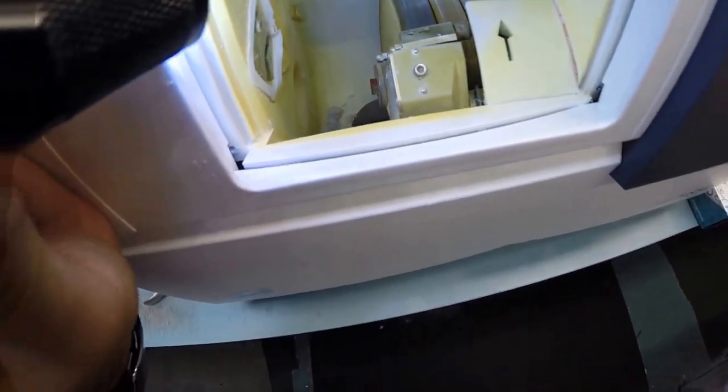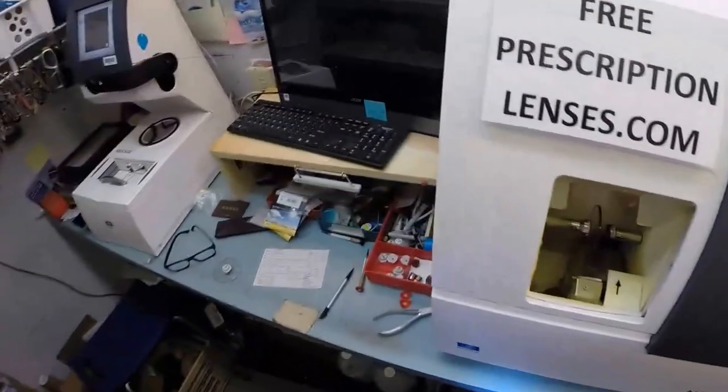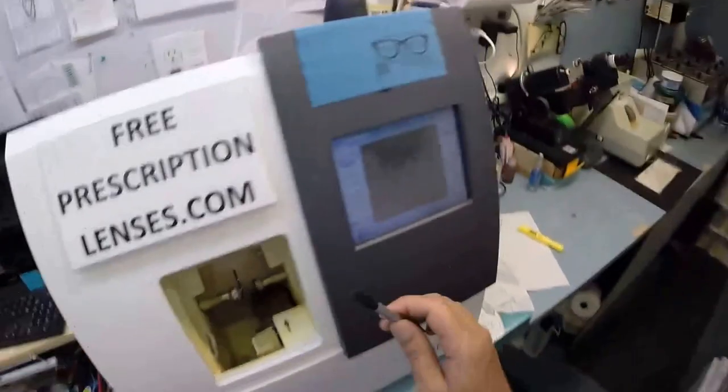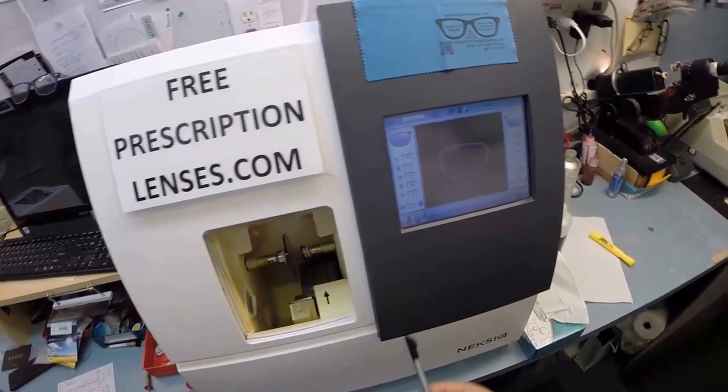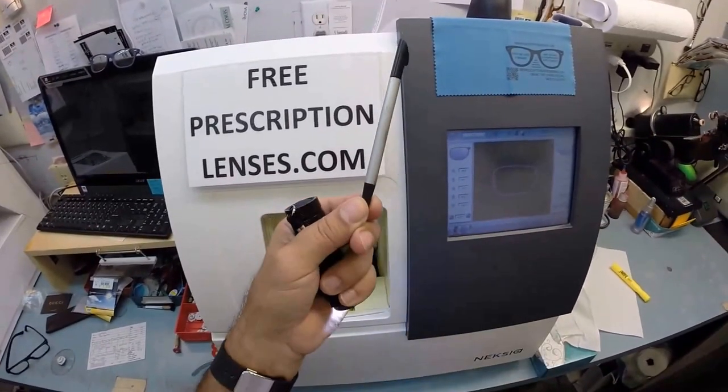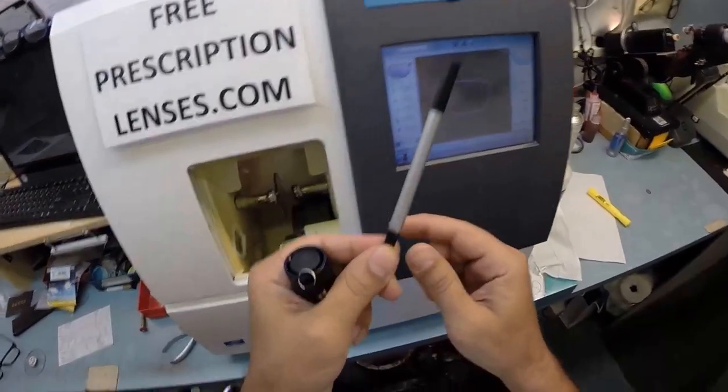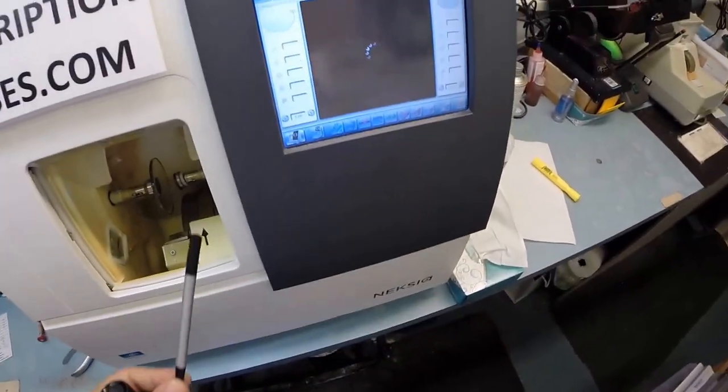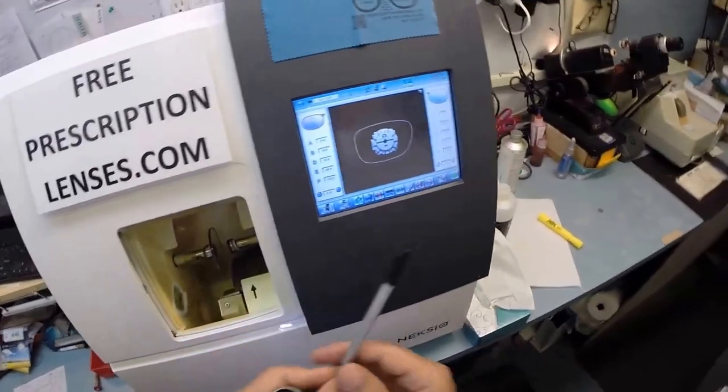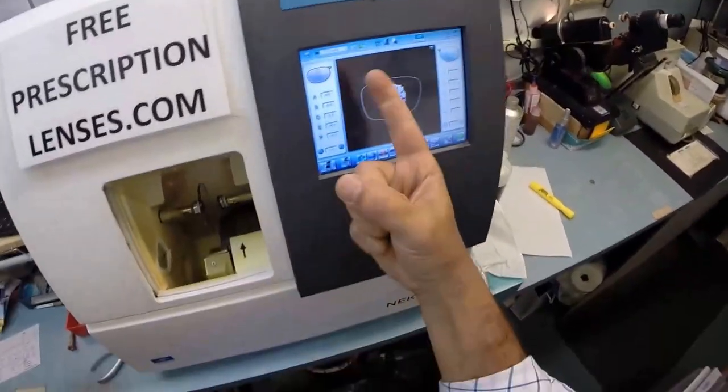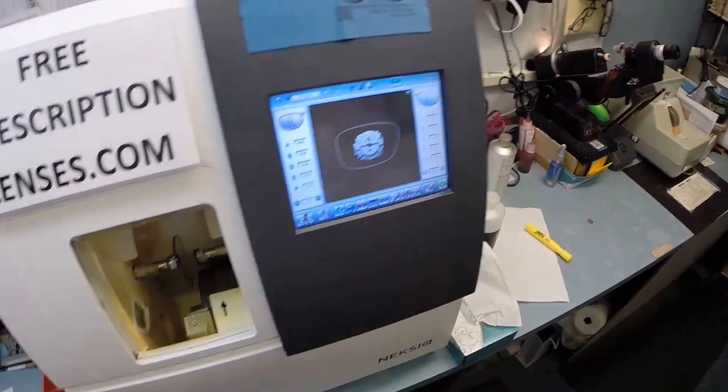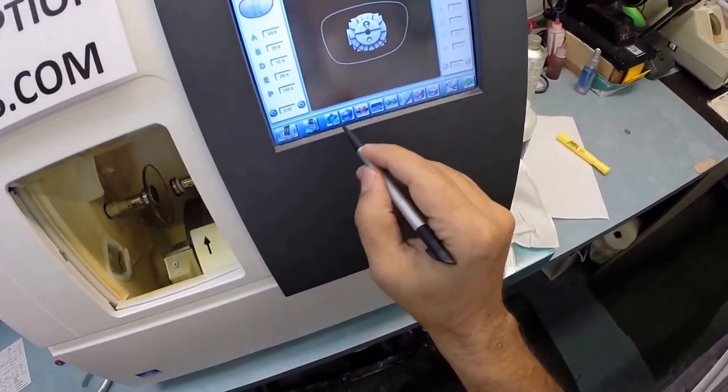Now the magnet, it's going to do its job a second time. It's going to hold it in place in the chuck, or as I like to call it, the Charles, because I don't know the machine well enough to call it chuck. Yeah, I know, more bad jokes. You're going to get plenty of them tonight. So actually, this machine does not cost $40,000. It costs $1. This costs $39,999. It's my stylus. If I didn't have this, could I do that? Oh well, I guess I could. I spent $39,999 on nothing. Well, I still got this one. It works on Apple products too.